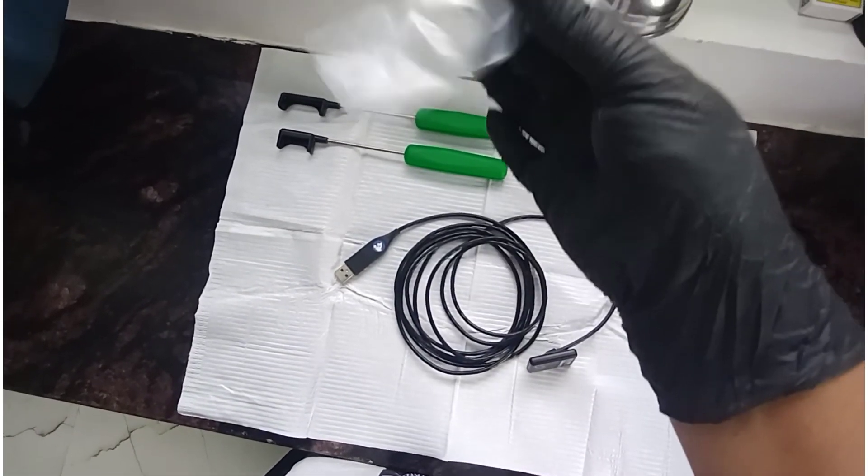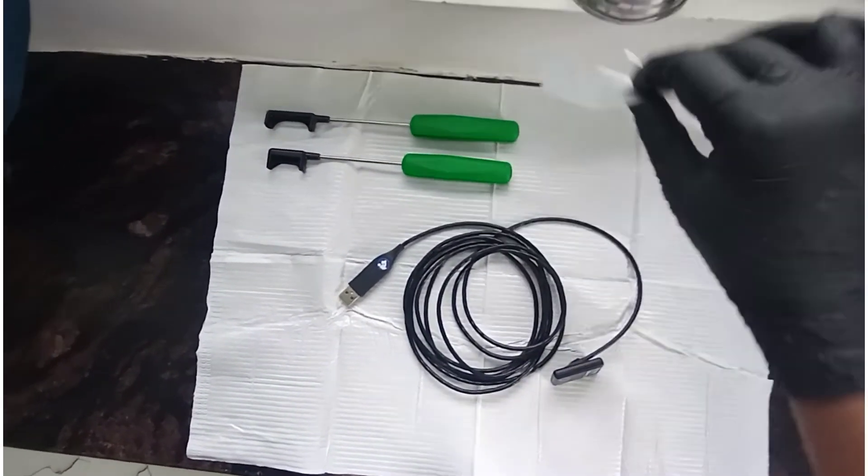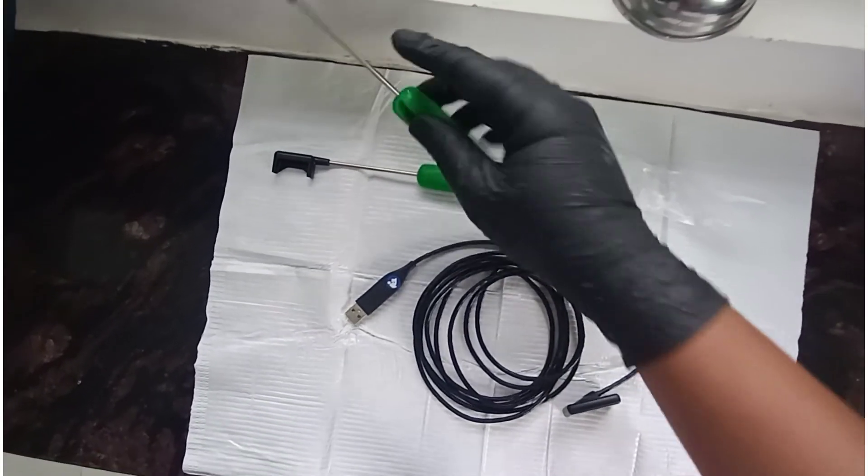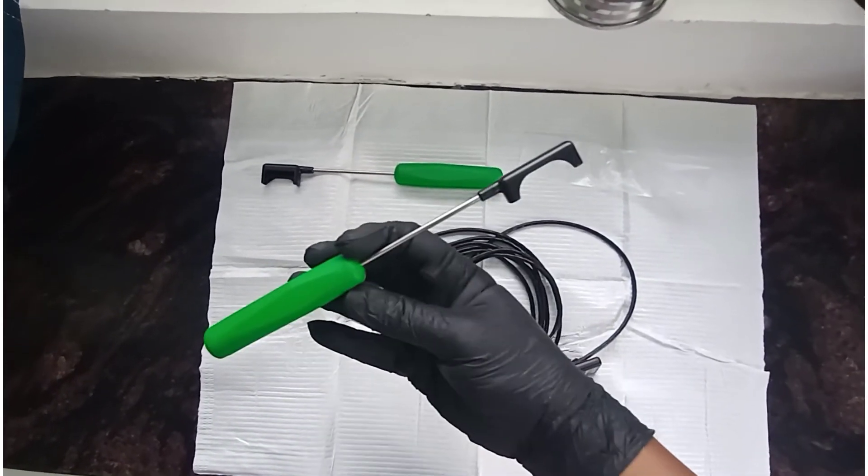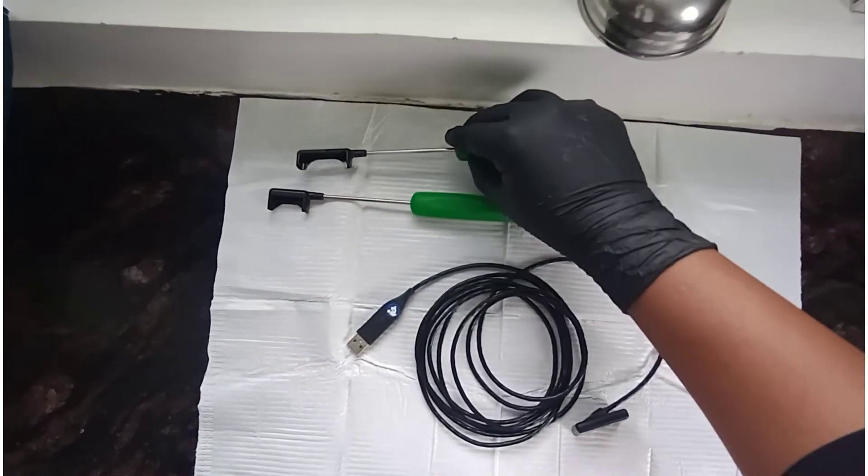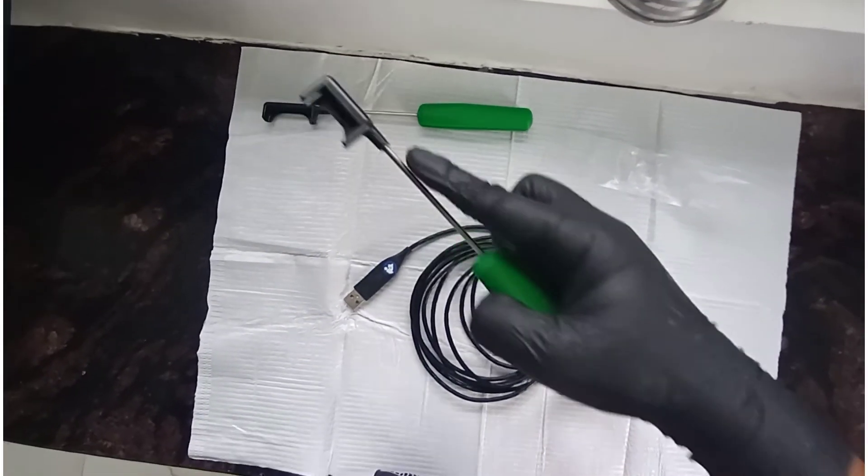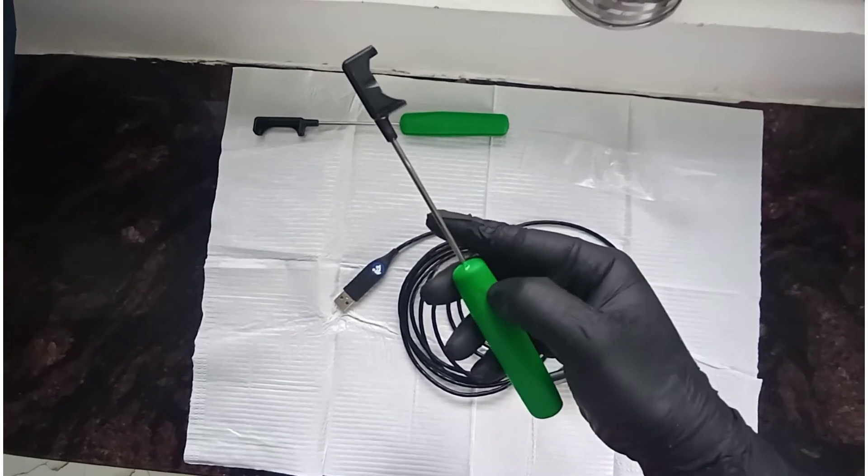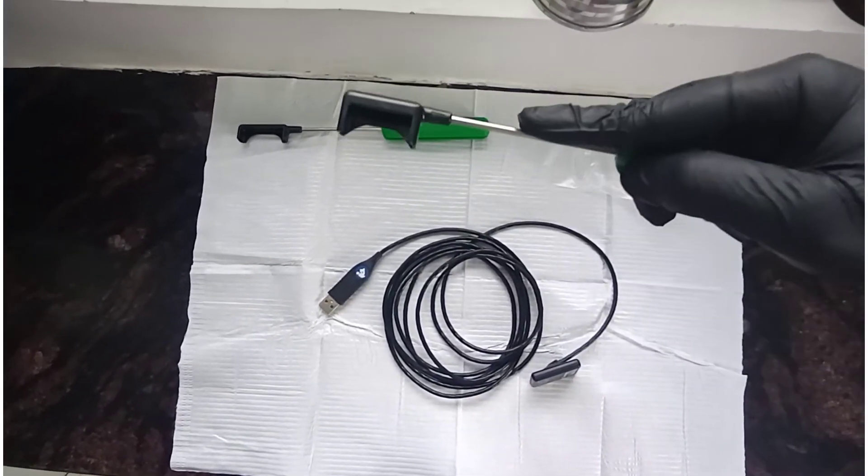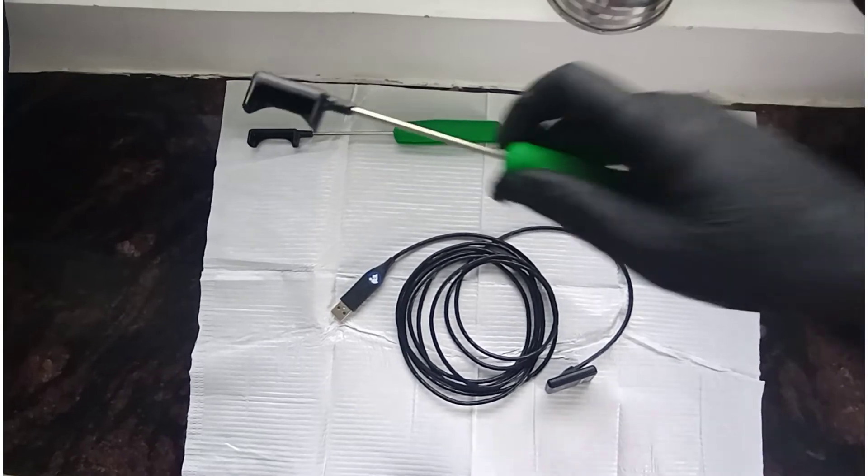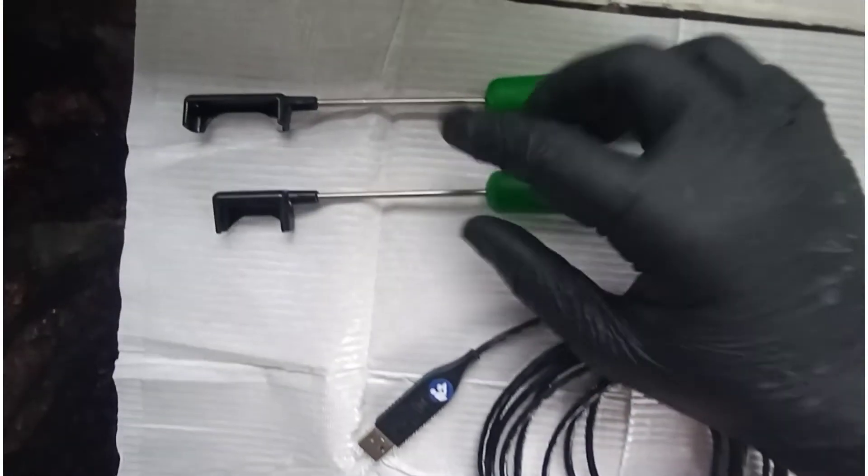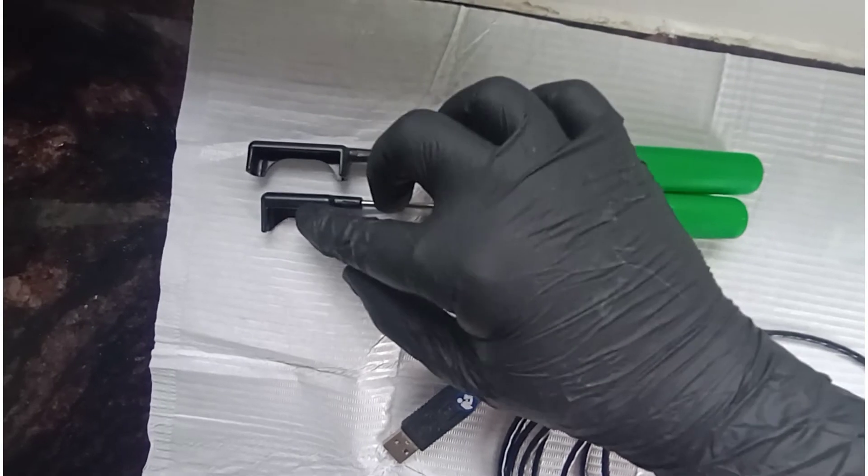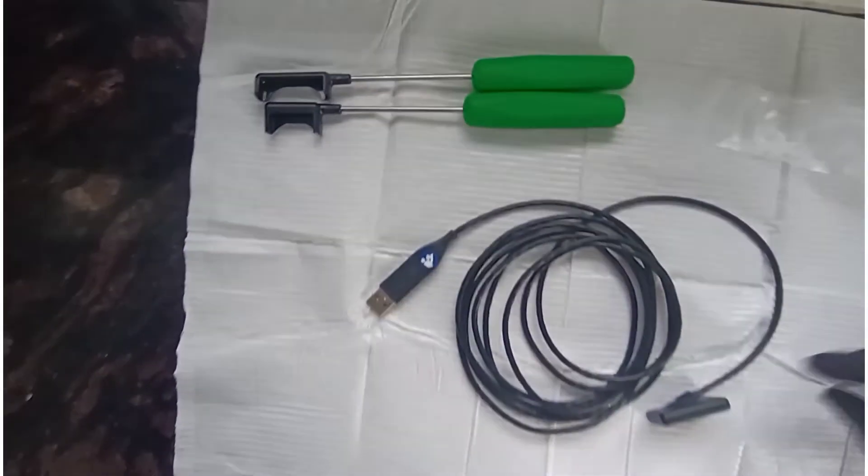We get RVG handles. There are two types of handles: the larger one is for adults and the smaller one is for pediatric use. This is a very useful instrument that makes RVG placement in the mouth very easy. You can see the size difference.